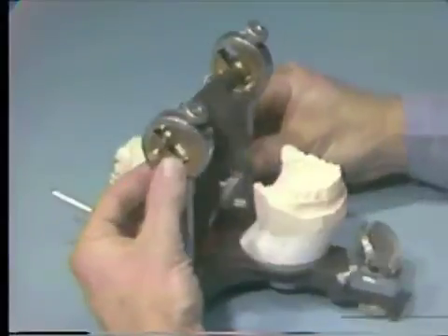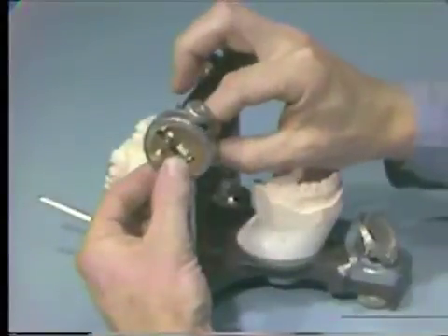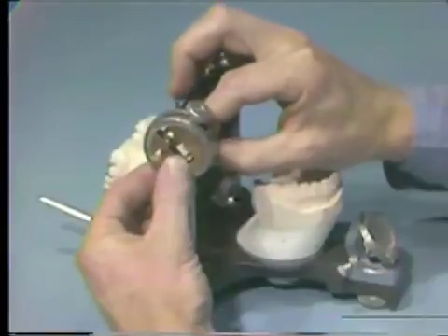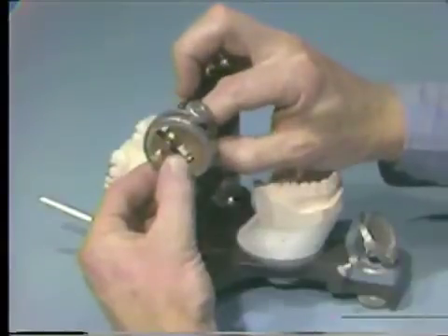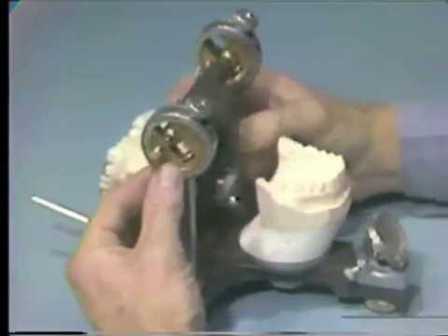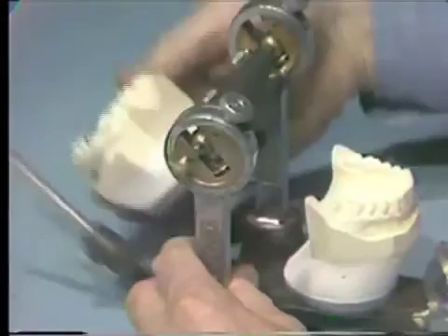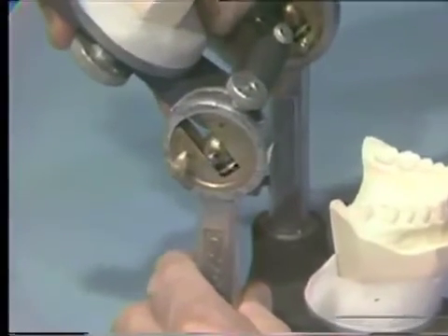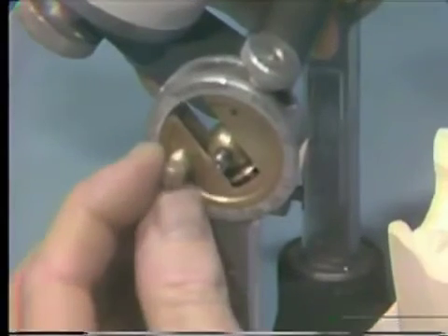Hold the centric stop thumbscrew in position and tighten the thumbscrew on the inner surface of the condylar guidance. Bring the condylar element forward until it contacts the centric stop and tighten the condylar lock. Repeat the procedure on the opposite side of the articulator.